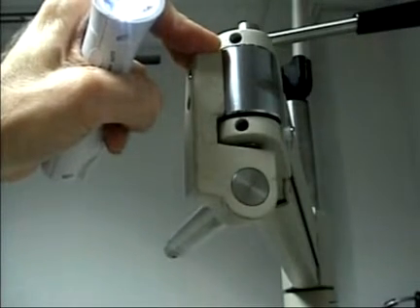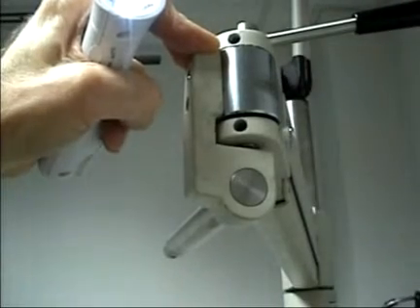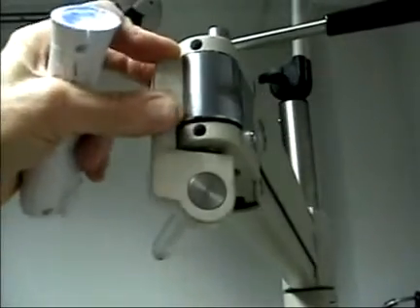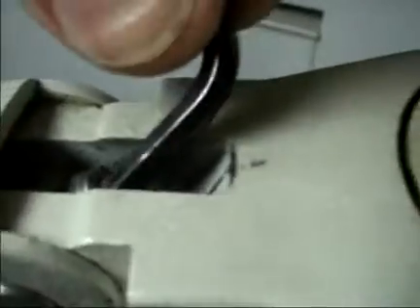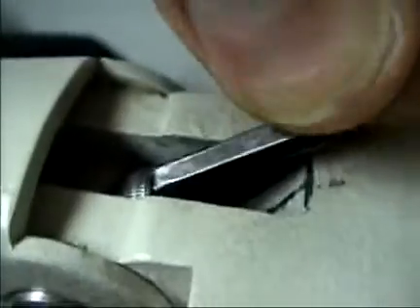Instead of turning one sixth of a turn at a time, you can turn 180 degrees or 360 degrees continuously to take up some of the slack on the spring. This is now counterbalanced pretty well. The second counterbalance screw is close to the pole, which can then be tightened using a 4mm Allen wrench — though it's definitely tough to do left-handed.